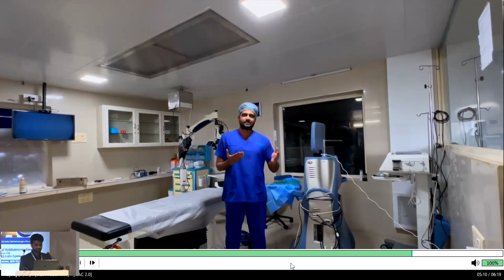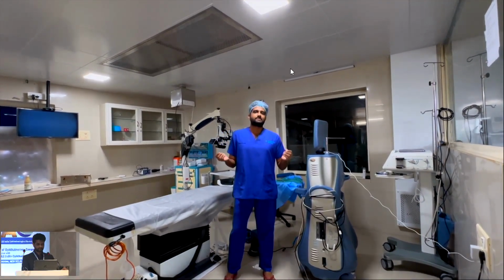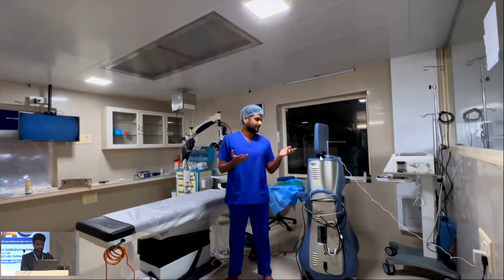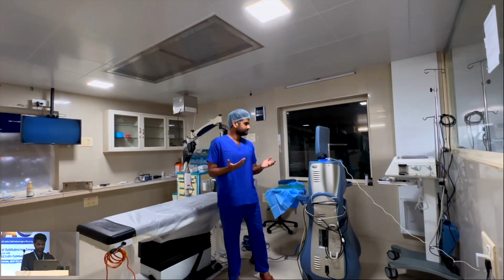So that is done. You can completely turn off all the equipment and devices in the theater with simple customizable commands like this. Alexa, stop theater. Okay.